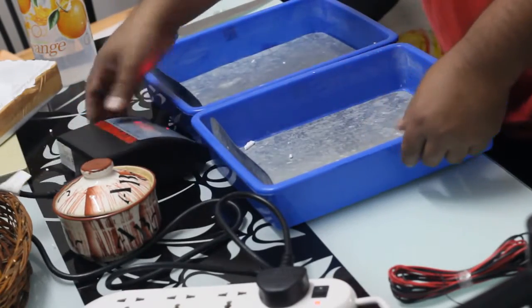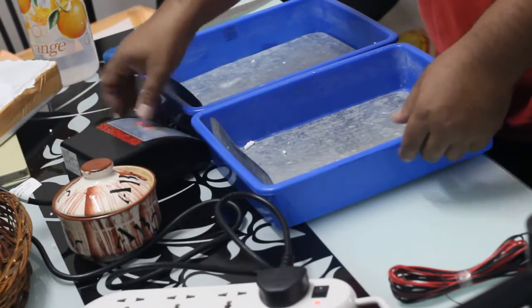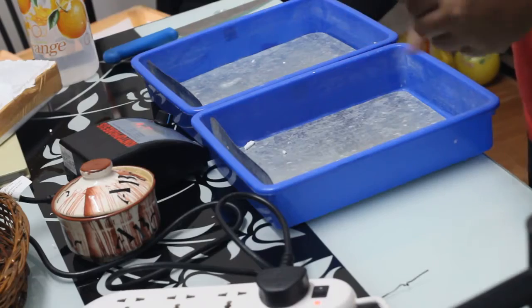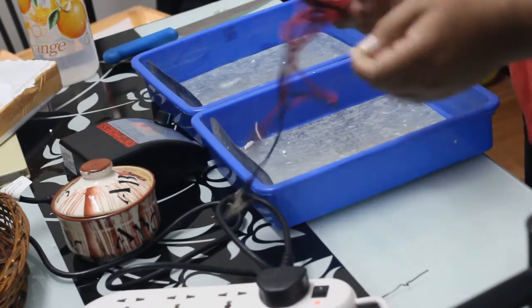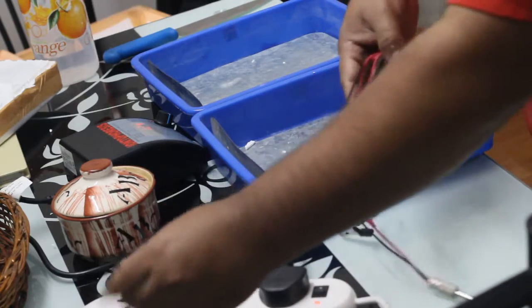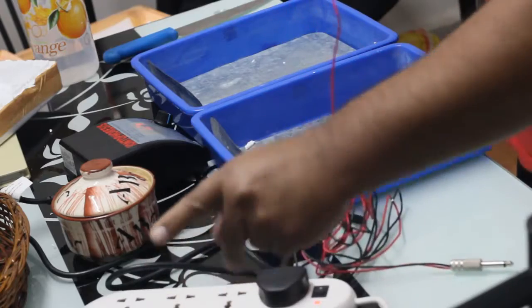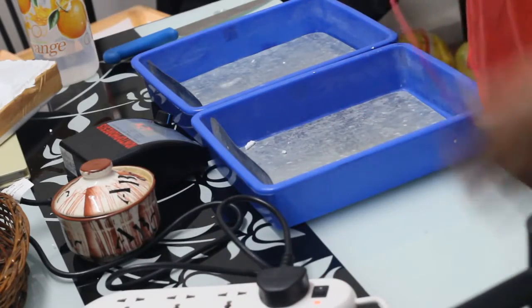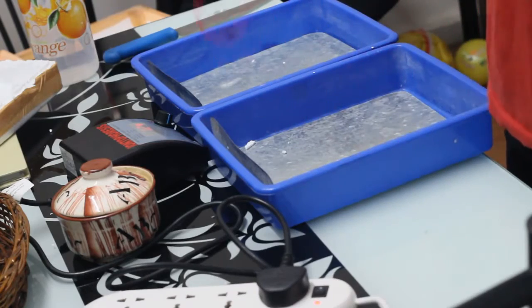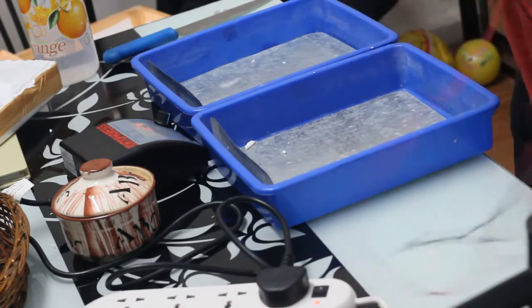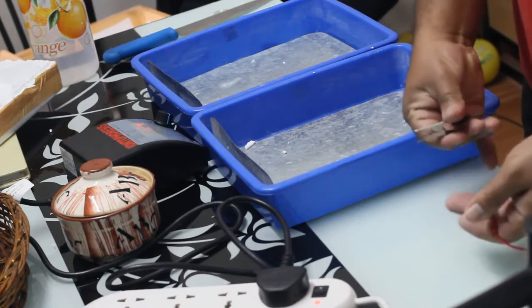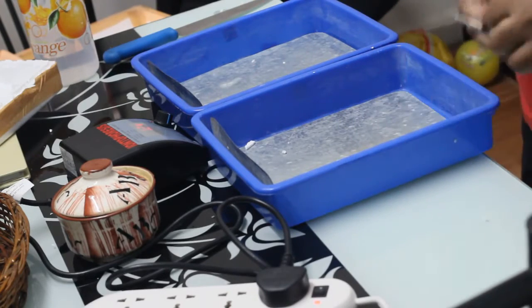Now the device. The intensity is 1.5, lower intensity. Once you make it high, you will come to know which outlet is open. Then the alligator clips. I'm going to open that and put it aside. Let the alligator clips not touch each other, otherwise there will be a spark and it can also damage the device.